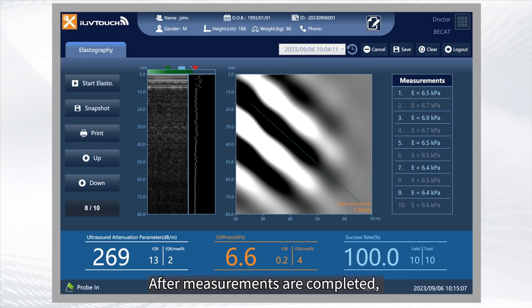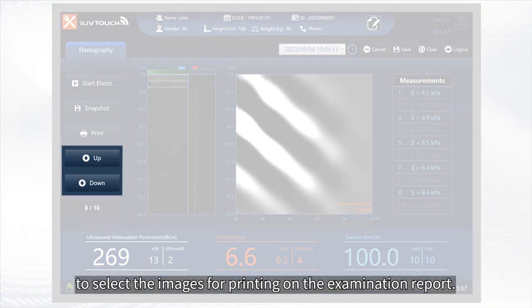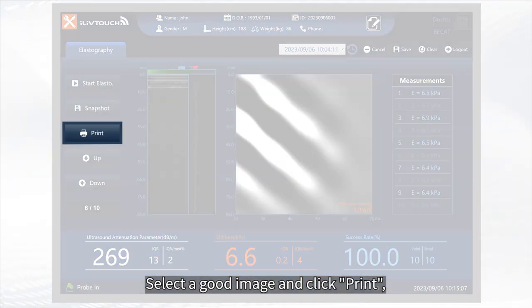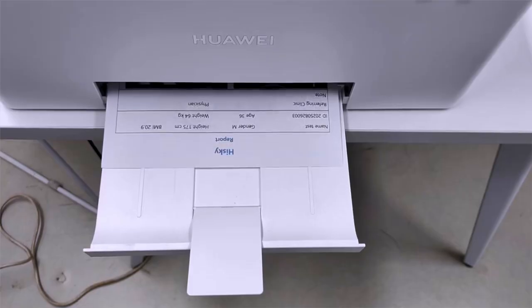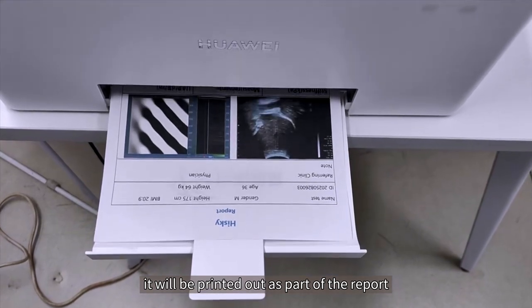After measurements are completed, click on Up or Down on the screen to select the images for printing on the examination report. Select a good image and click Print. The report is printed while being displayed on the screen. When an ultrasound image is saved, it will be printed out as part of the report.